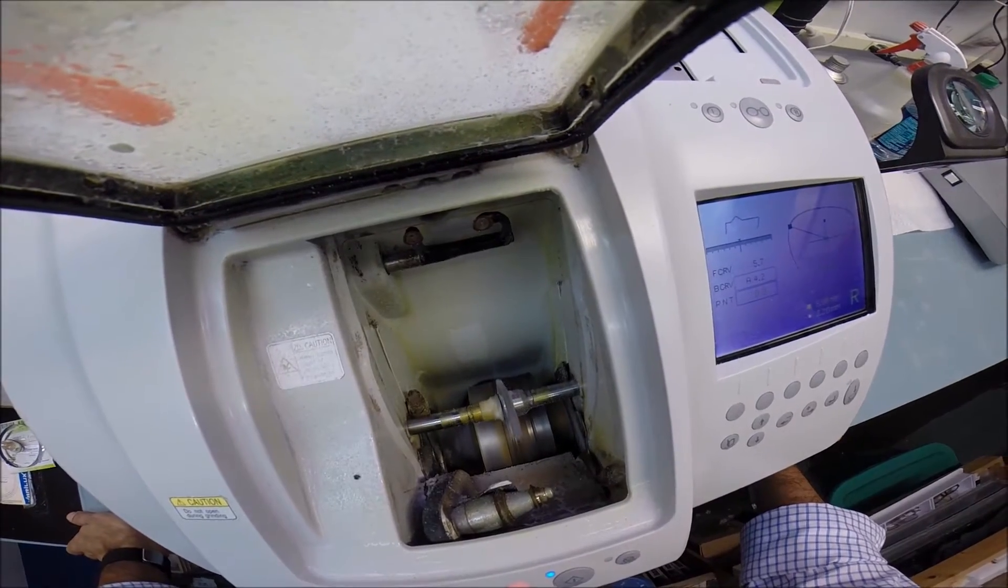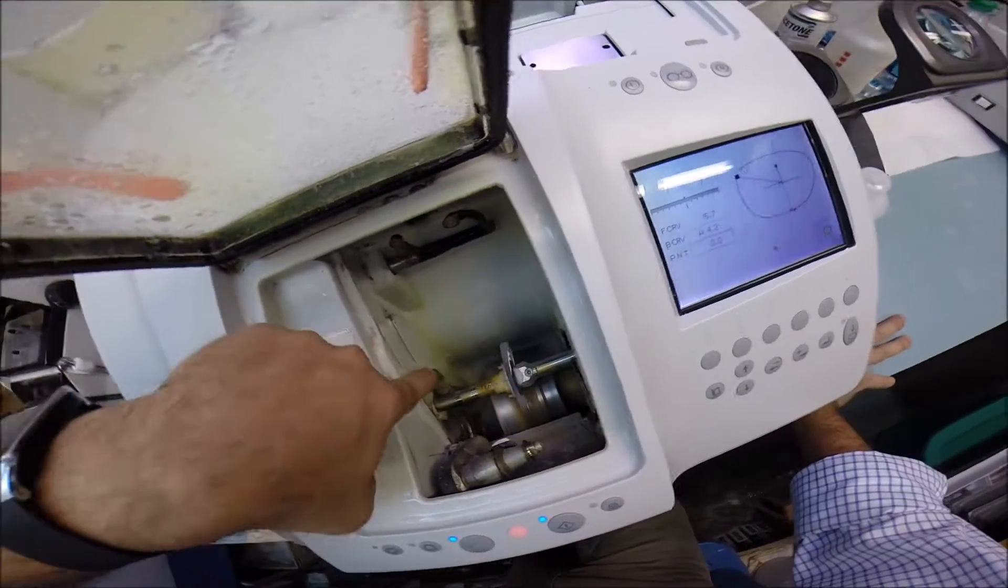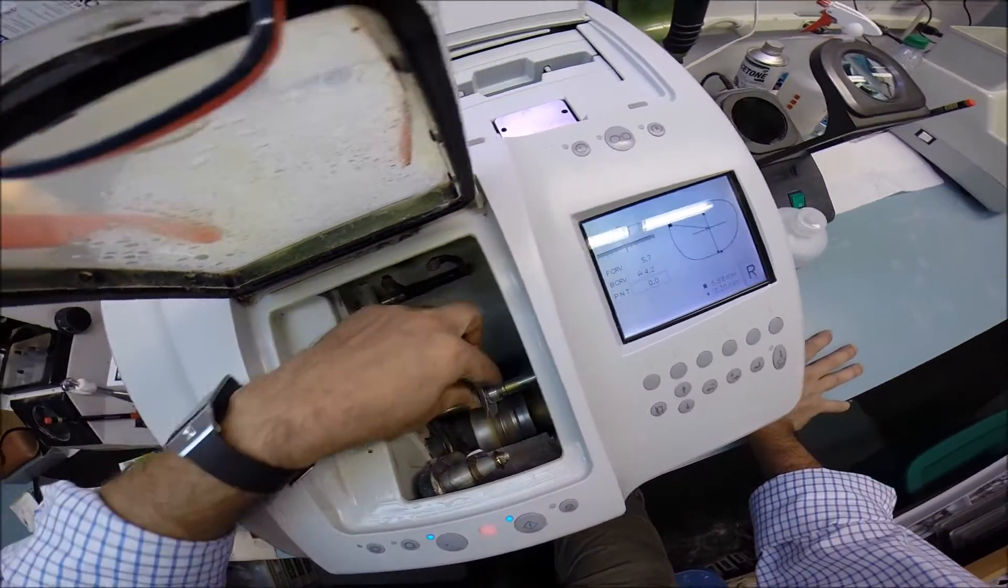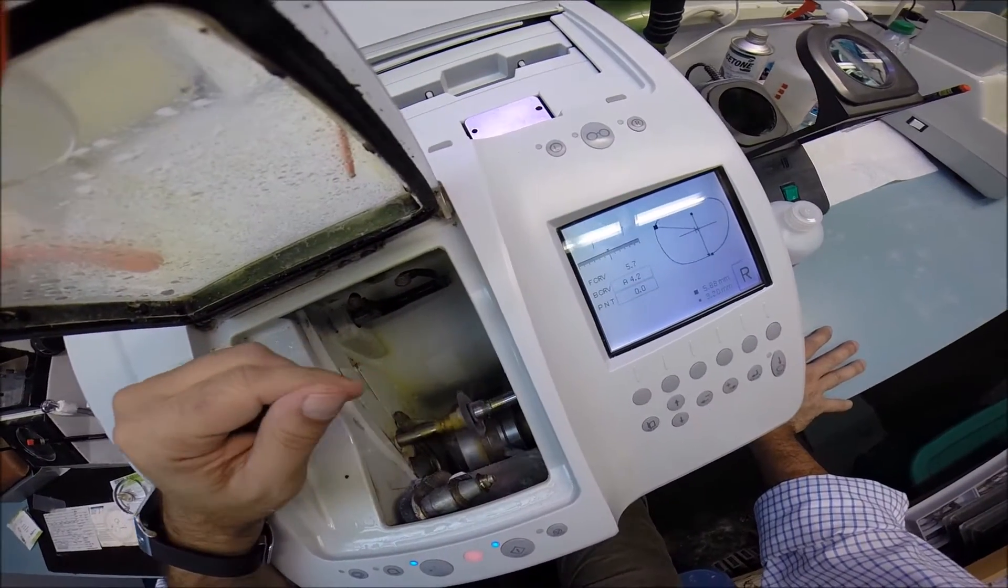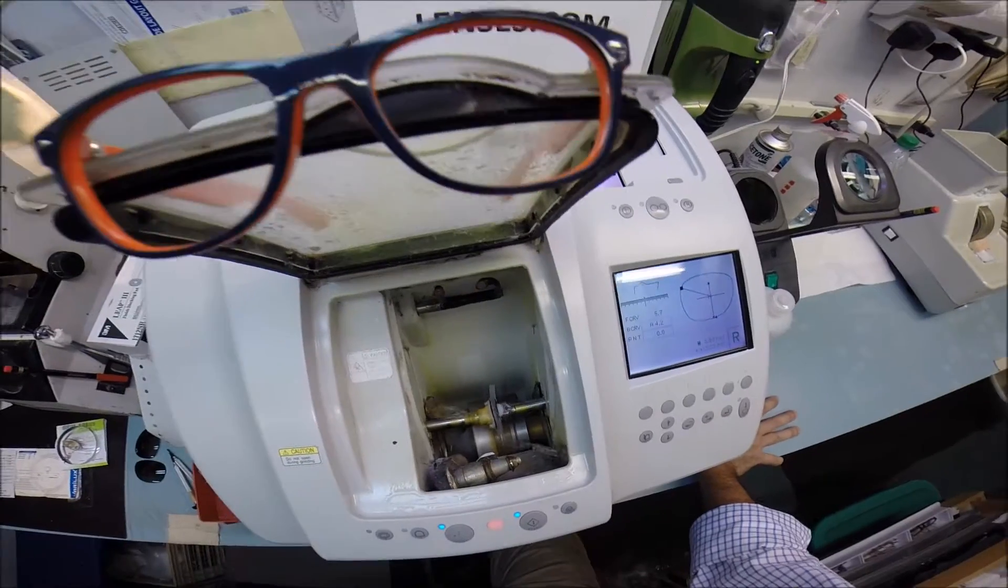Now, for the very end of the cutting cycle, two water jets, one in the front and one in the back, are going to spray water to try and wash any optical debris that may be on your lens. The kind of stuff that I'm pulling off.